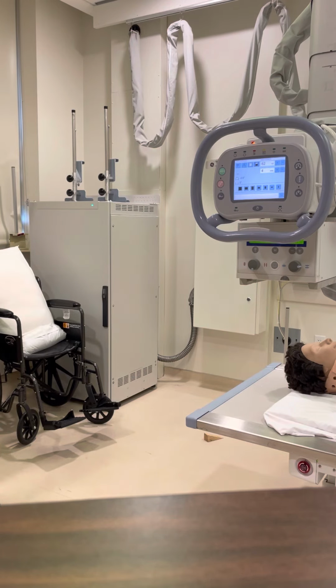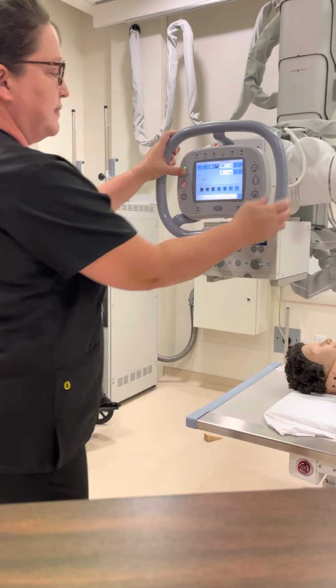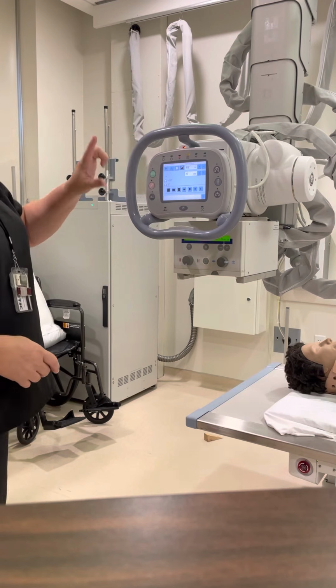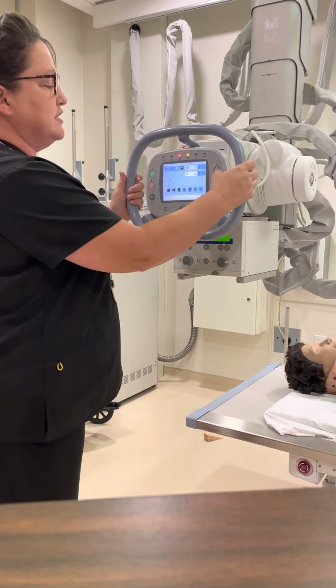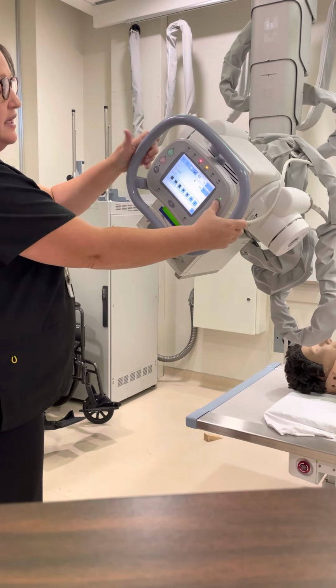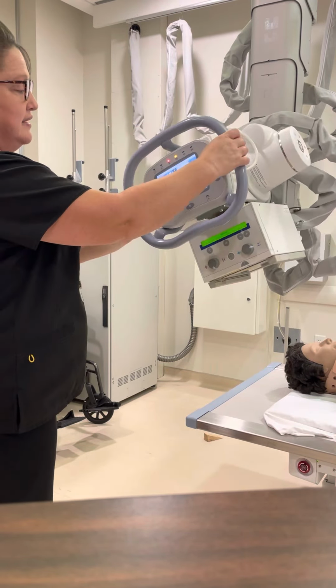All right, there's a few other controls that I want to show you all. Let me make sure we're centered well enough that you can see them. And I'm gonna actually move it over just a little bit again. Okay, so the buttons on the front of the tube. The first one, this one rotates. So this one rotates it or angles it left to right, okay?